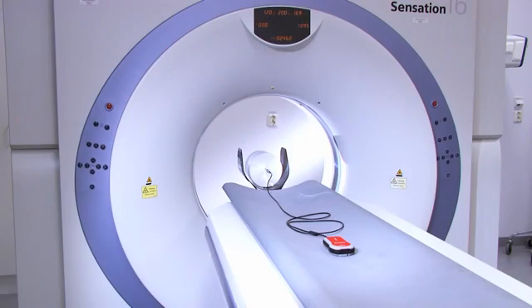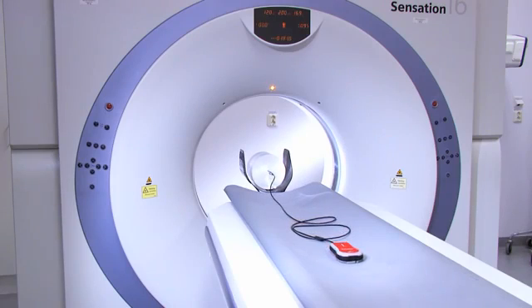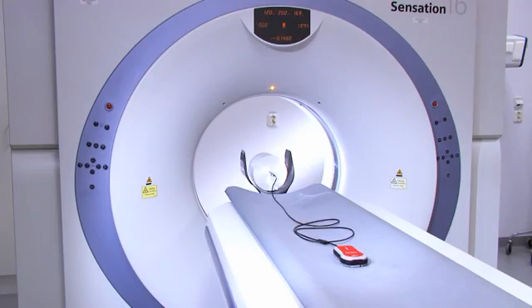With the CT dose profiler, you only have to perform one helical scan instead of the usual five axial scans due to the automatic calculations in the program.